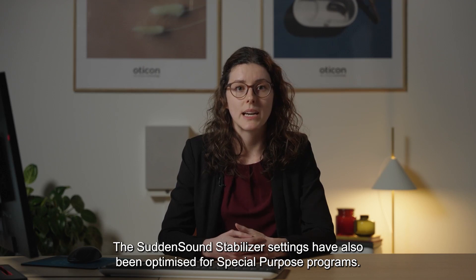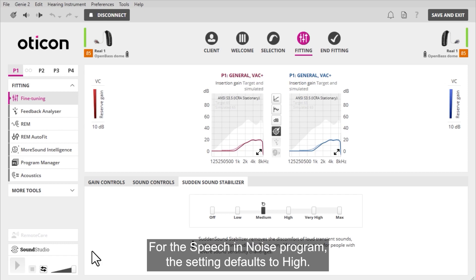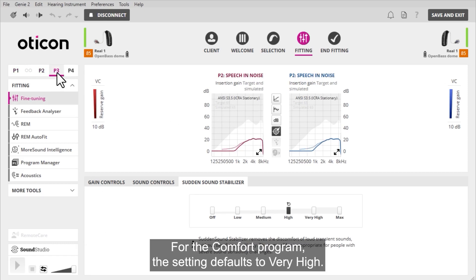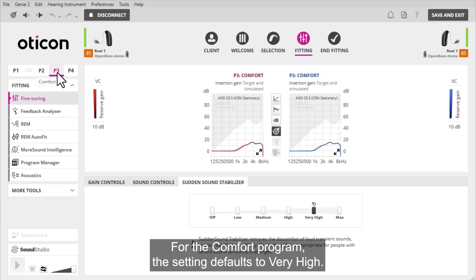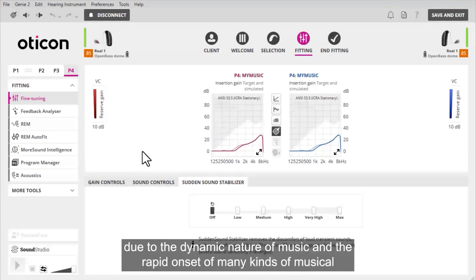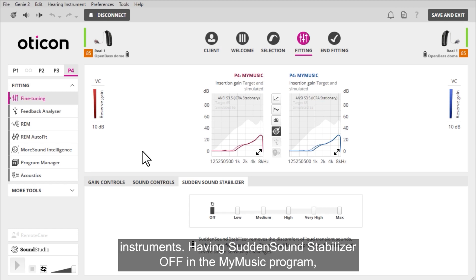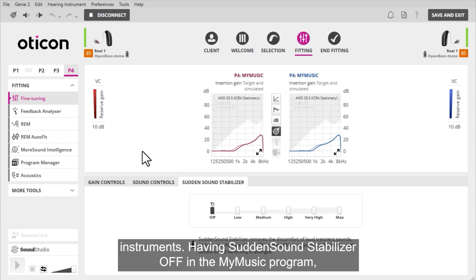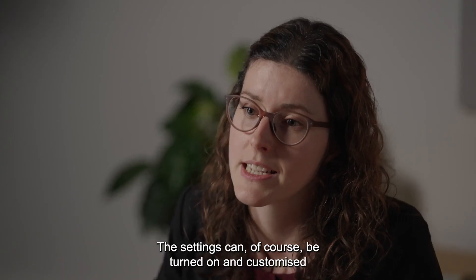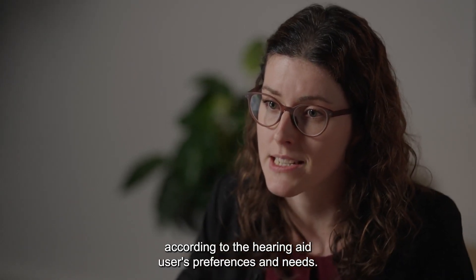The Sudden Sound Stabiliser settings have also been optimised for special purpose programmes. For the Speech and Noise programme, the setting defaults to High. For the Comfort programme, the setting defaults to Very High. And for the Music programme, the setting defaults to Off due to the dynamic nature of music and the rapid onset of many kinds of musical instruments. Having Sudden Sound Stabiliser off in the Music programme helps to preserve the full music experience. The settings can of course be turned on and customised according to the hearing aid user's preferences and needs.